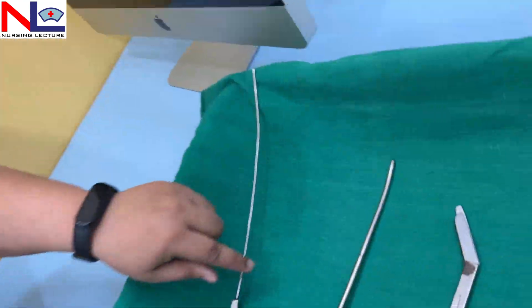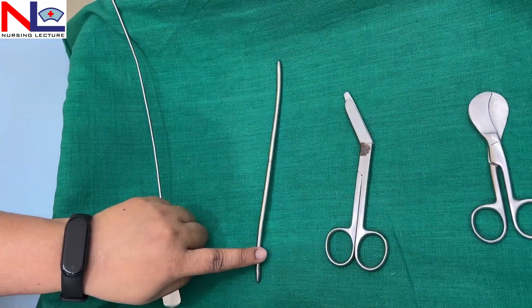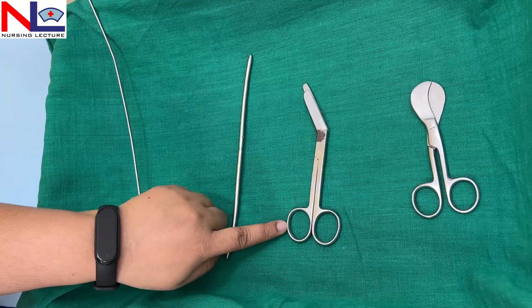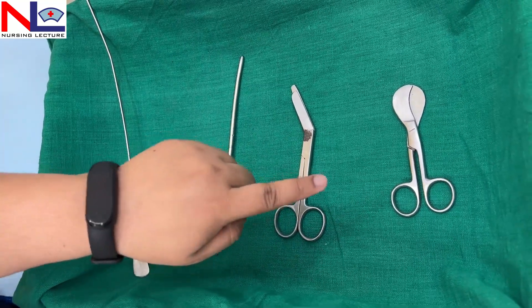In this lecture we discussed several instruments: uterine sound, Hegar dilators, cervical dilators, episiotomy scissors, and umbilical cord cutting scissors. In the next Part 5, we'll discuss some more instruments. Thank you.